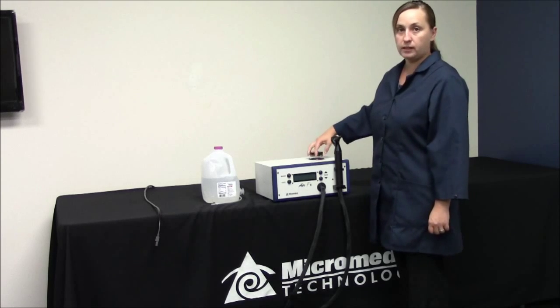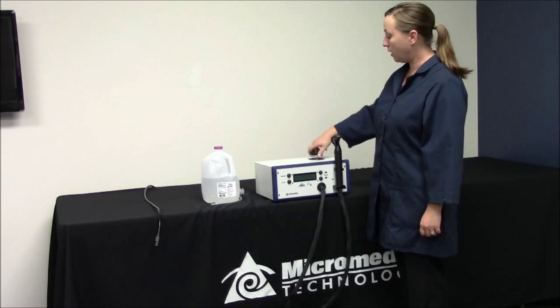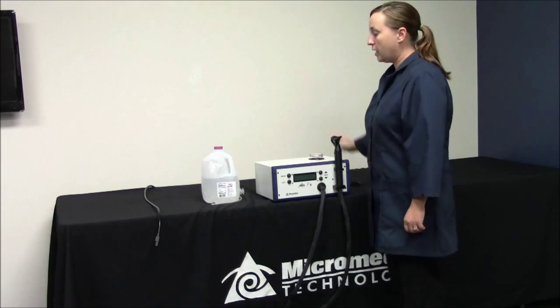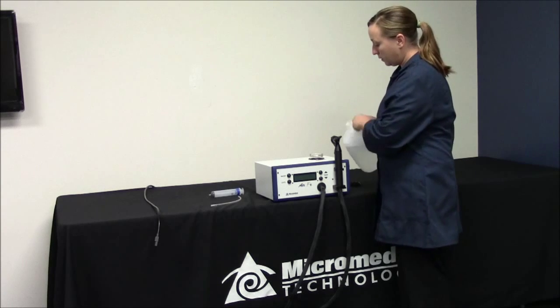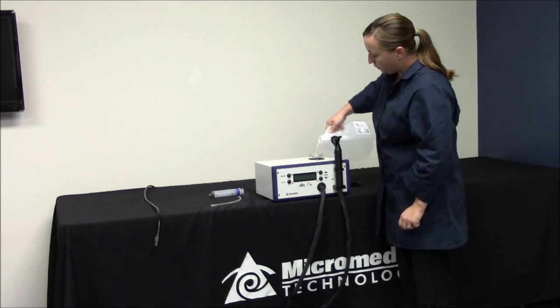First you're going to take the water reservoir lid off. Next you're going to fill it with distilled water. You're going to fill it all the way up to the threads.